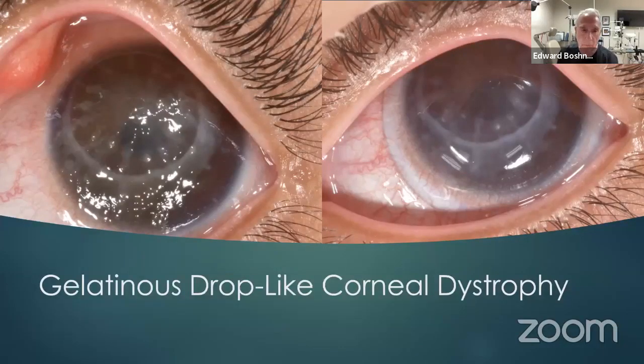This is again a very, very rare condition known as gelatinous drop-like corneal dystrophy. It's genetic. There have only been a few cases like this documented in the world, mainly in Asia and principally in Japan. This patient is a visitor from the Middle East. It's a young boy, 11 years old. This is after the second corneal transplant. Without the lens, the patient's visual acuity is less than 20/1000. With the scleral lens and eyeglasses over, the patient's able to identify around 20/70 vision. And his corneal surgeon says he's on a waiting list for another transplant in about a year. So this is where a scleral lens can actually change a life and save a life.